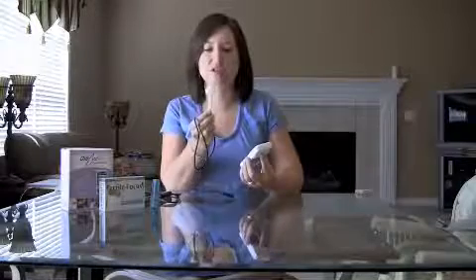It comes with a couple of accessories. This is the sensor for the saliva and you would put it just on your tongue. It takes about 3 seconds to take your reading, so it's really fast.